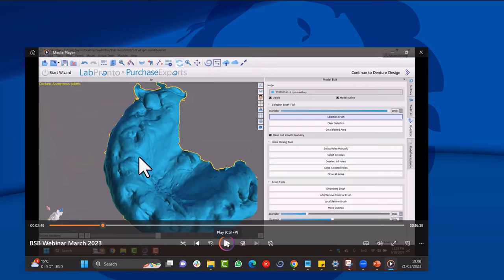An important step: swap the face orientation of the impression model. Because an impression gives you the reverse of the model surface, the software thinks it should work on the underside, which gives an incorrect result. Export the cleaned model, check 'swap face orientation,' call it 'model repair' or 'max swap,' then re-import it in the correct orientation. I'll show why this matters in about five to ten minutes.